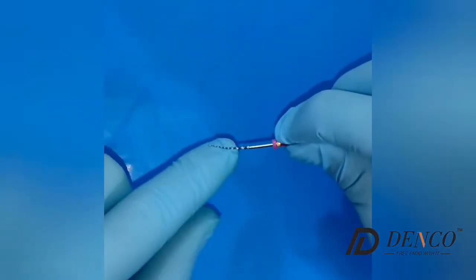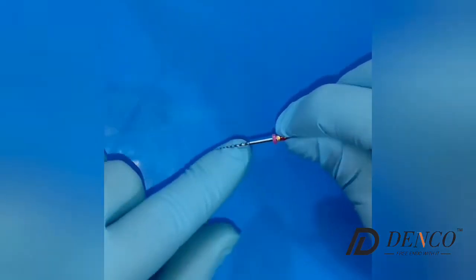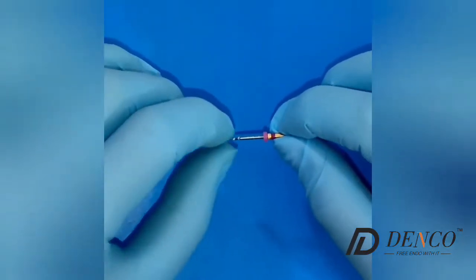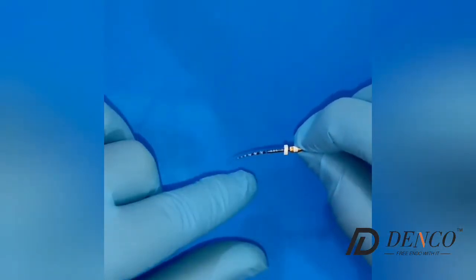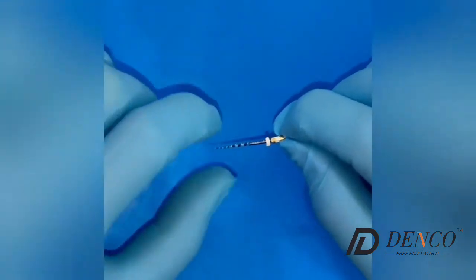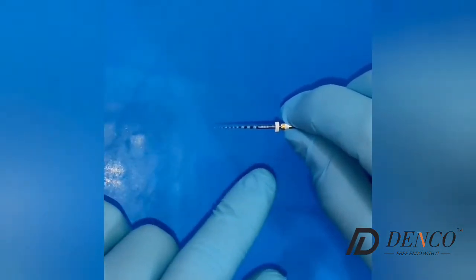You can see how flexible they are. In the video, you're going to see how efficient they are at cutting. We're going to use extracted teeth to show you how these files work. This is the S2, and you can see how flexible it is. It's the shaper — these are files to shape the canal, the mid third and the coronal third of the canal.